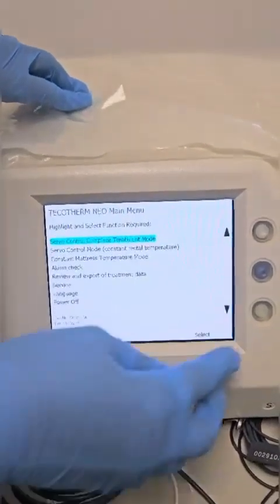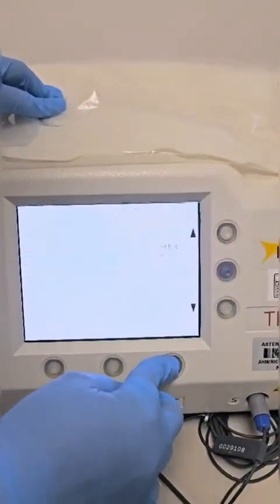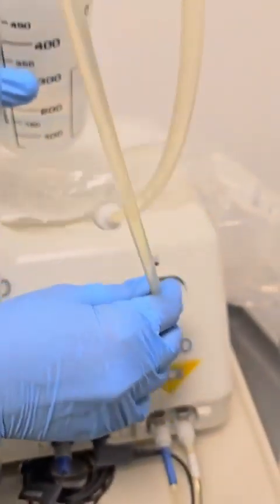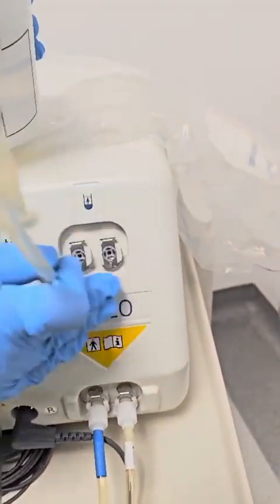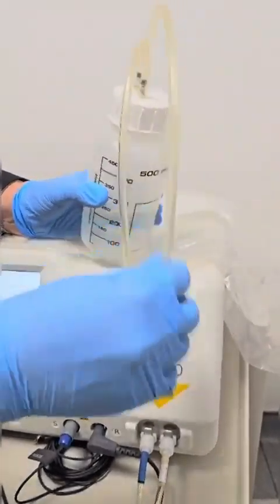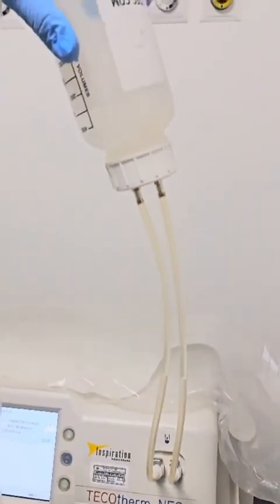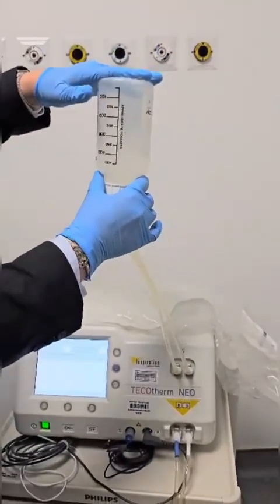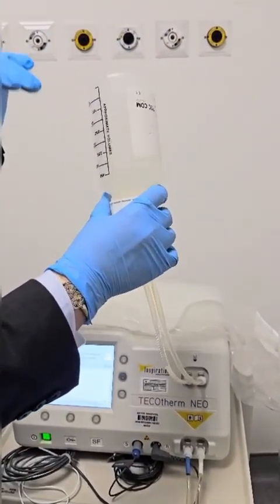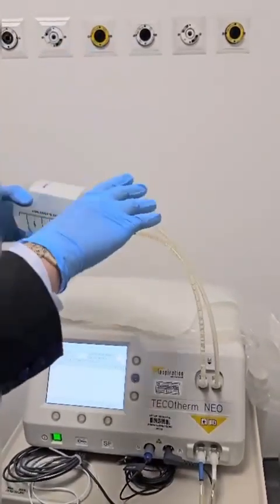The first thing to do after turning on the machine, you will go to Constant Mattress Temperature Mode and then press start. You have to make sure that the water is connected here — this part is going to take the water into the system, so the direction of the water is towards the system. You have to hold the fill-up set upside down. If additional water is needed, take out the fill-up set and refill it with water.